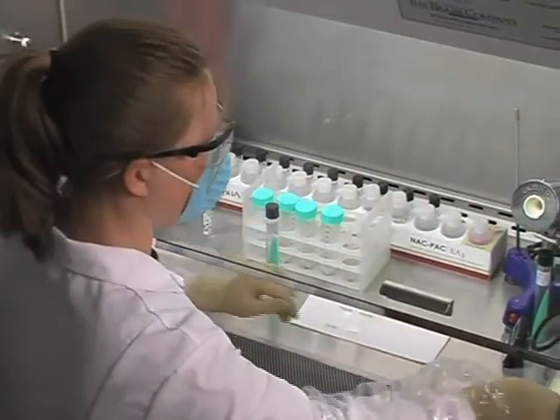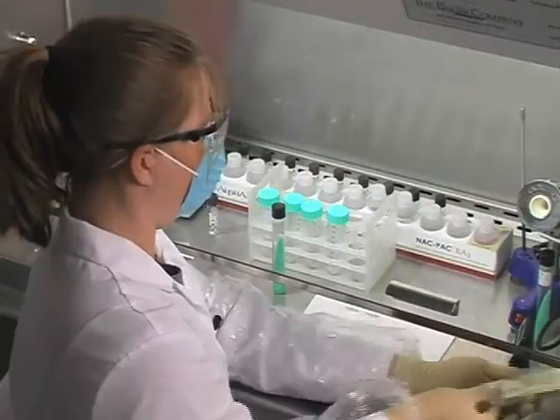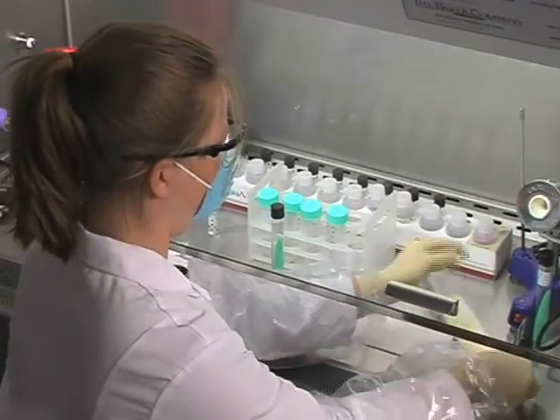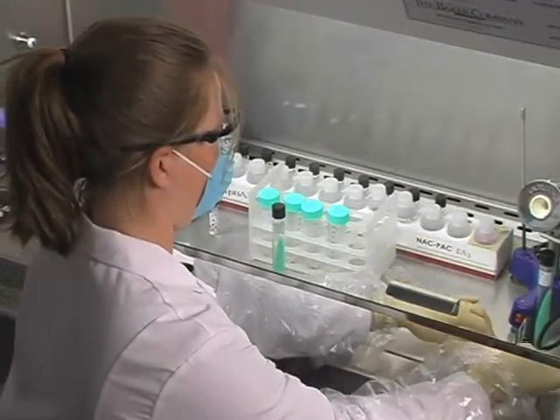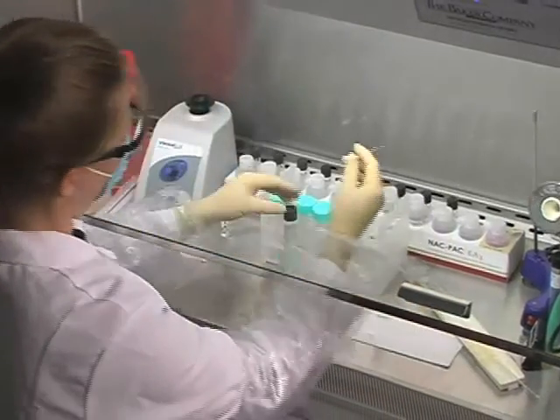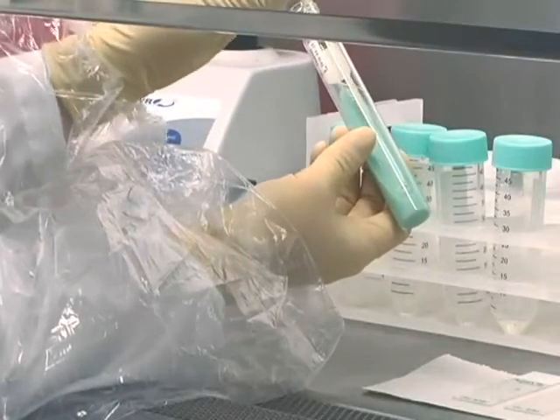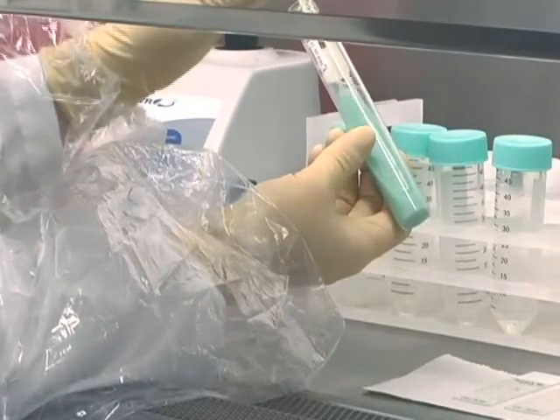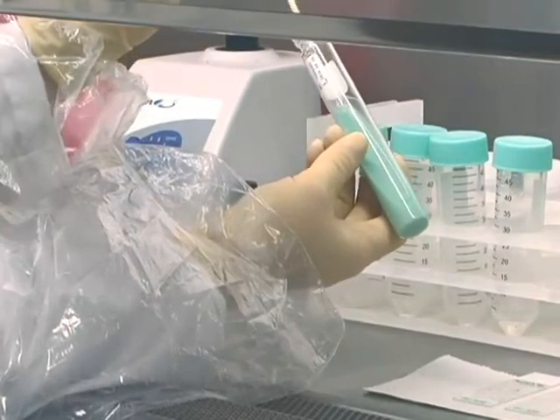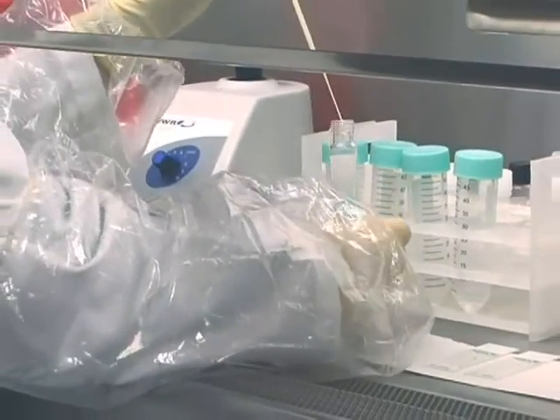There are many other types of specimens submitted for AFB processing which require different procedures. Stool and gastric aspirates, as well as processing specimens contaminated with Pseudomonas species, all require specialized procedures for recovering mycobacteria. Please refer to the attached literature provided in this training manual for directions on processing these types of specimens.